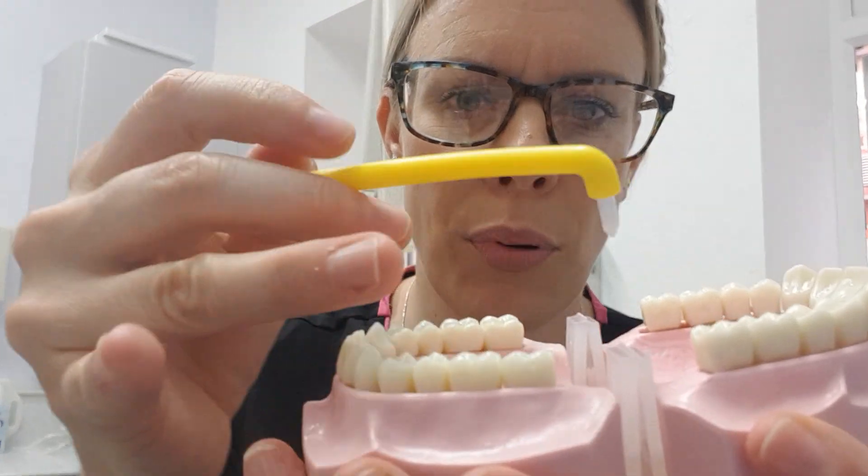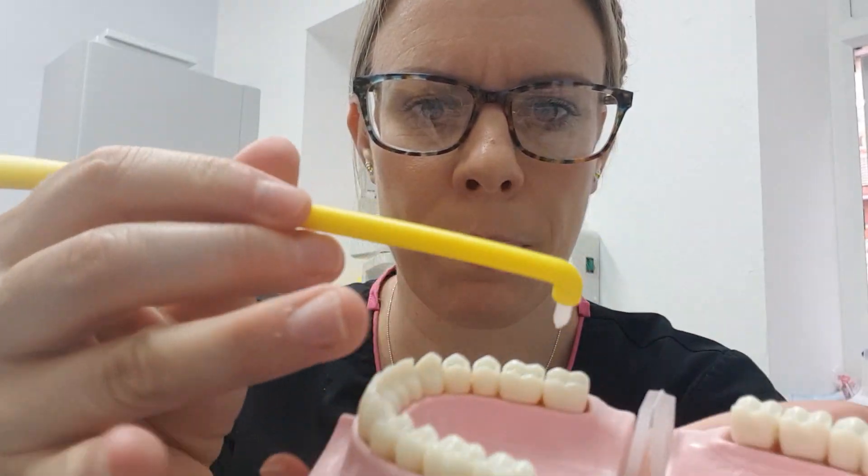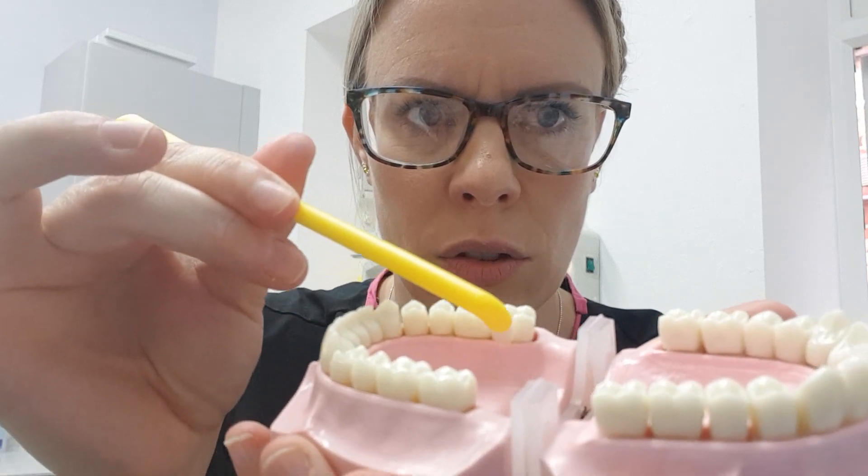So I hope that's helpful. If you don't have an Oral-B electric toothbrush, there is a manual version — this one happens to have a yellow handle but they come in different colours. They're about two pounds usually, and the process is the same: working it into the gum and around.